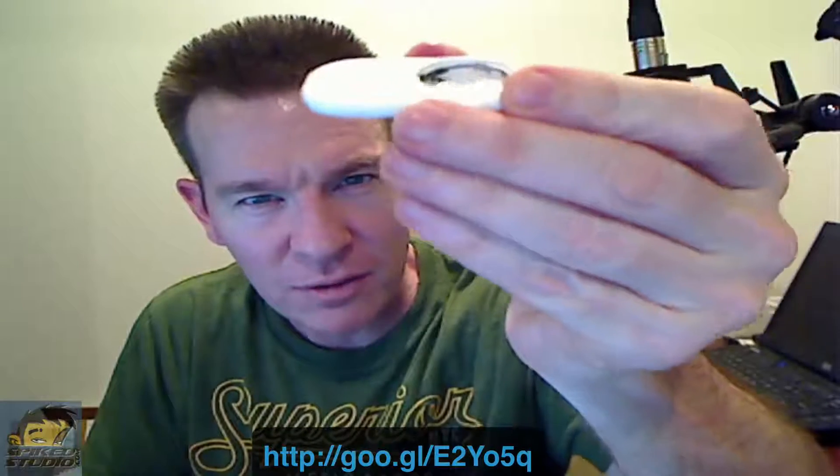Getting the battery in and out requires a screwdriver or coin. Interestingly, that little clear plastic piece that comes in the box has a ledge that fits perfectly into the battery slot on the back of the FeverSmart — that's actually what you should use to open and close the battery case, though the instructions don't make that clear. I also tried bending the metal contact strip up a little to get better pressure, but the connection still came and went regardless.